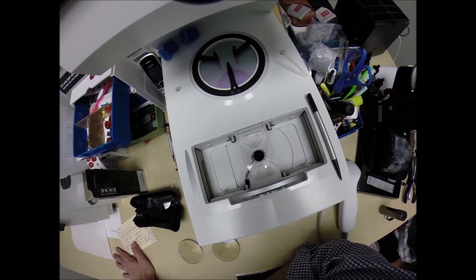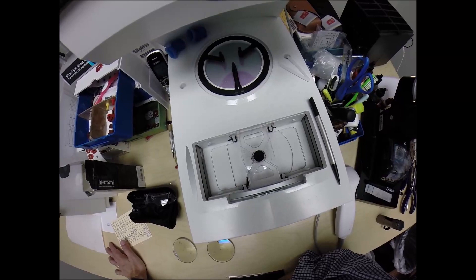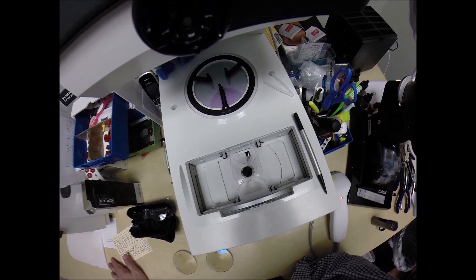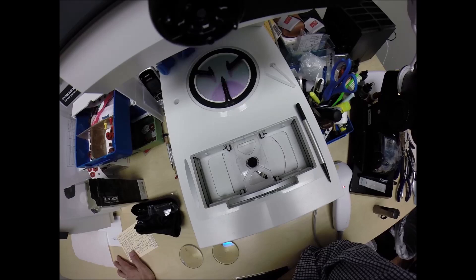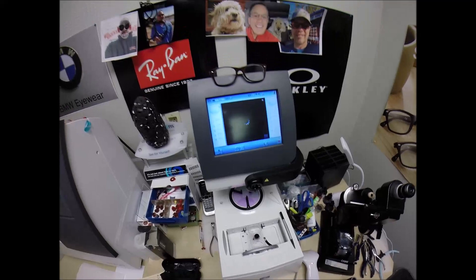The stylus is going to pop up and go around and trace the outside of the right lens here at freeprescriptionlenses.com where everyone loves a bargain and no one is disappointed in quality. You buy a genuine authentic Oakley frame and you'll receive one free pair of clear single vision prescription lenses or non-prescription fashion lenses. My receipt has my federal ID tax number. So if you have vision insurance or unused health savings account dollars, you will get reimbursed for this purchase.